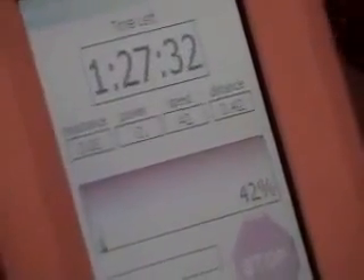There are a total of five different settings you can look at: distance, time left, and resistance — which can go up and down. Certain modes have a plus or minus so you can control it, which is a very cool function of the RT300. Next is power and speed, and speed is one you can go up and down on too.